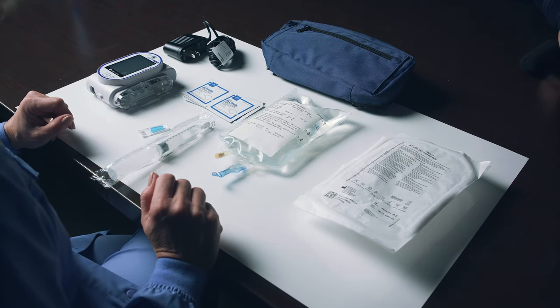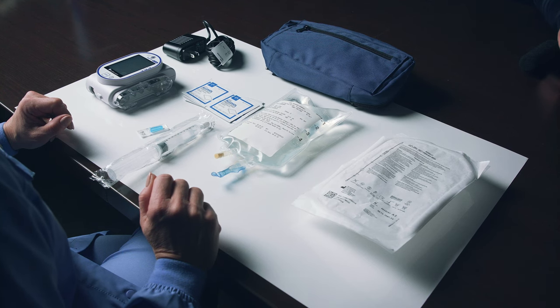Please note: if your tubing is disconnected from your IV catheter and not used until the following day, or if the medication is TPN, you will not reuse your tubing for your next dose.